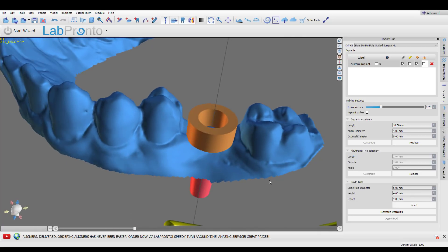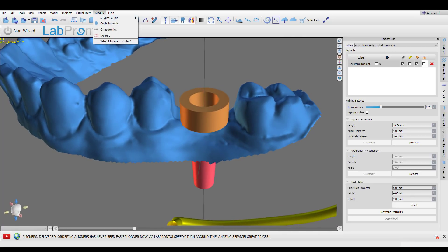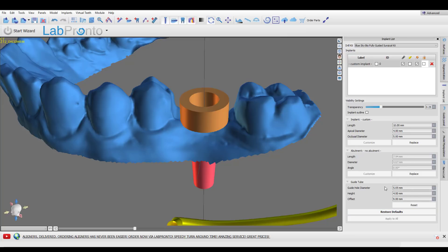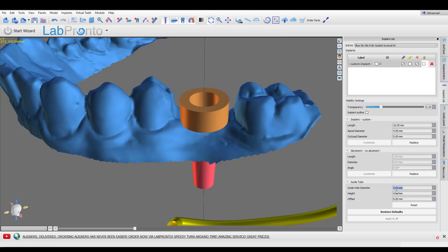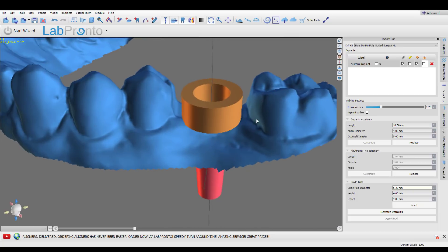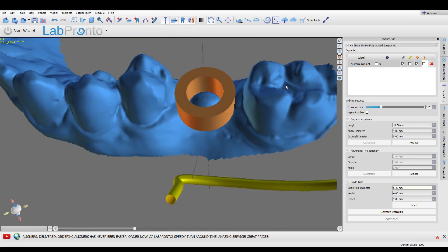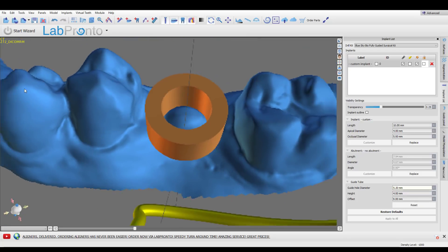To manually control these numbers, make sure you're in surgical guide mode and advanced mode, because that gives you manual control over all of the settings. Go down to the guide tube settings and you can simply change that to whatever you want. Remember I said the outer diameter of the keys for this kit is 5, so I'm going to make the guide hole diameter — the inner diameter of the plastic sleeve — 5.2. It'll give you a little warning basically saying you're driving this manually now, so make sure you know what you're doing.